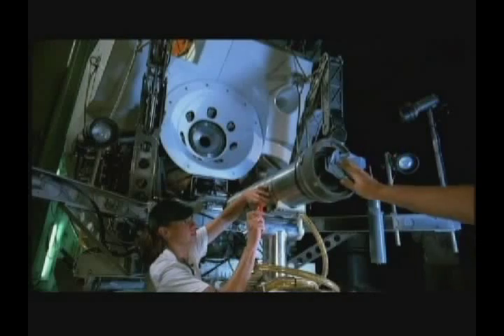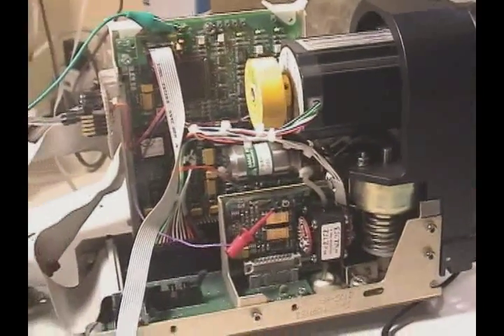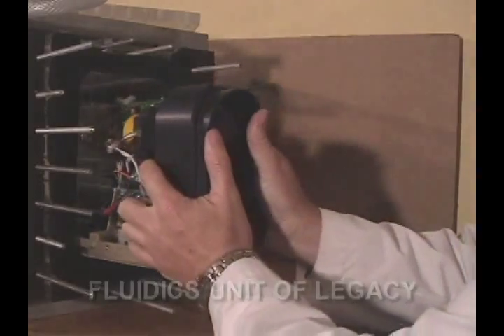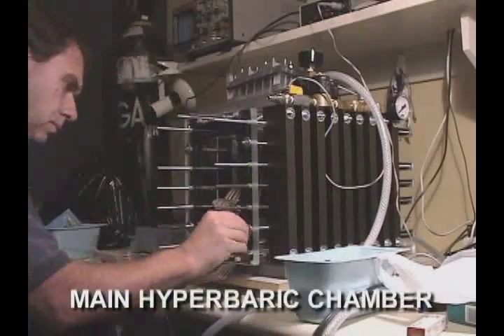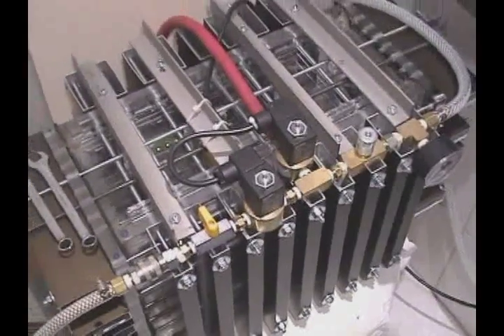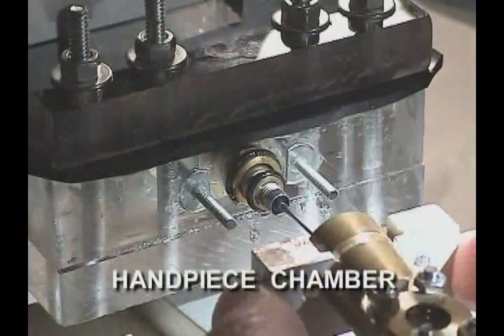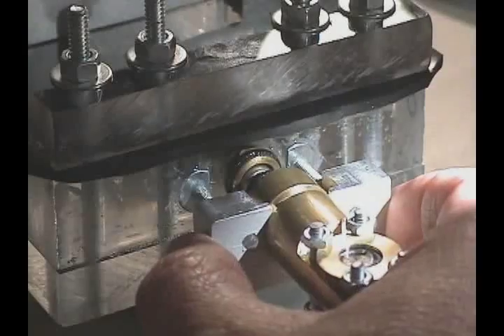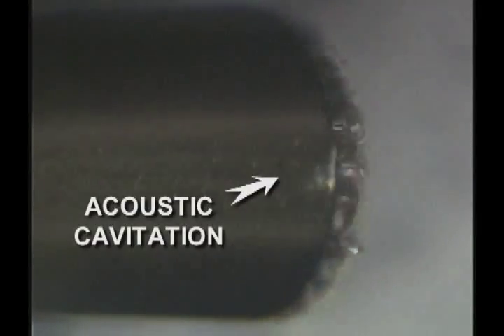In the same way Alvin, the deep sea explorer, was built, we built a hyperbaric system to contain the complete fluidic system of a phaco console, including the actual peristaltic pump, the handpiece, and the phaco tip. Although complicated, enclosing the complete fluidic system was necessary to maintain standard operating conditions such as irrigation, aspiration, and vacuum during the deep sea pressure experiments.